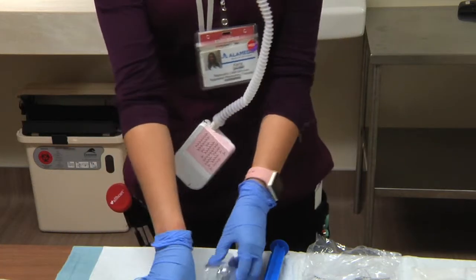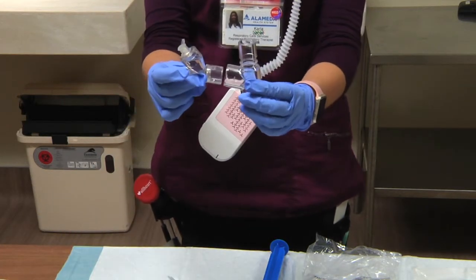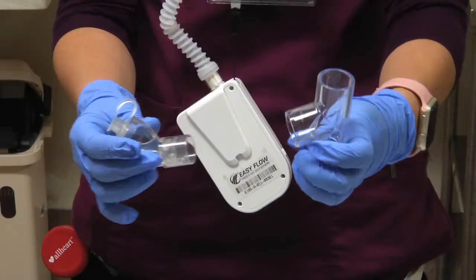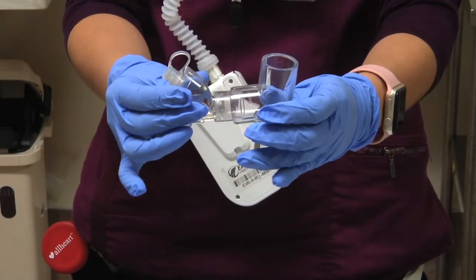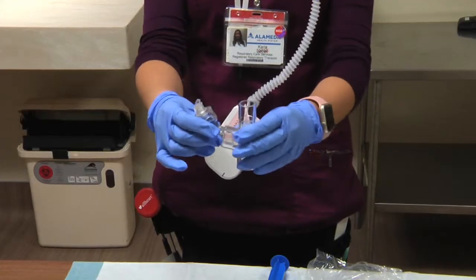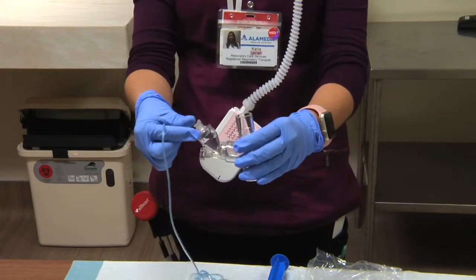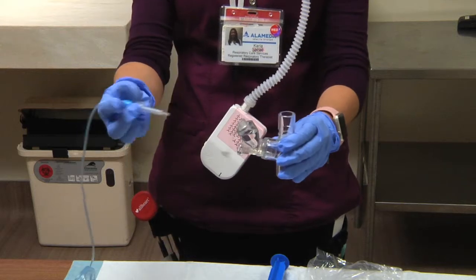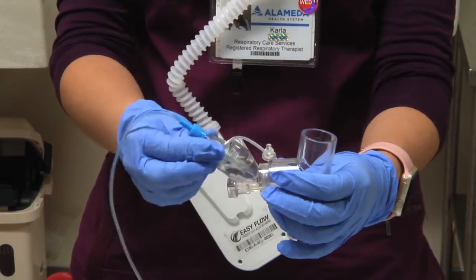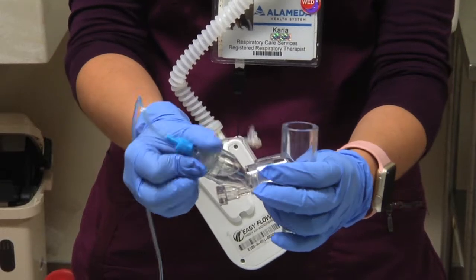The first two main parts are these. Just insert right in the middle. This will go in the inhalation part of the ventilator or the BiPAP. And then you will attach the longer port to the actual Aerogen.